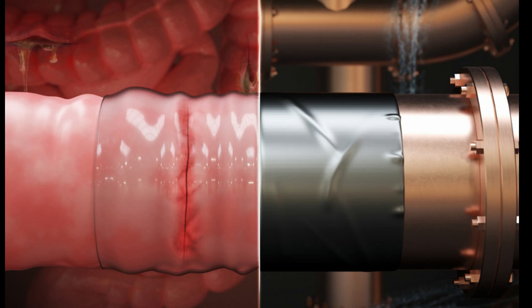The new surgical duct tape builds on the research team's 2019 design for a double-sided tape. That early iteration comprised a single layer that was sticky on both sides and designed to join two wet surfaces together.